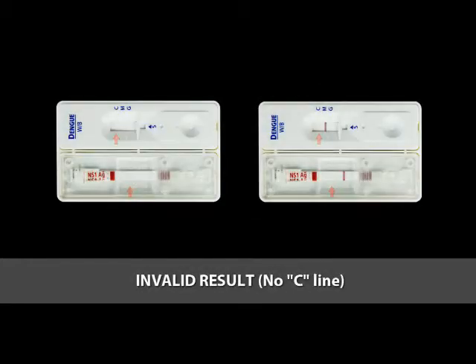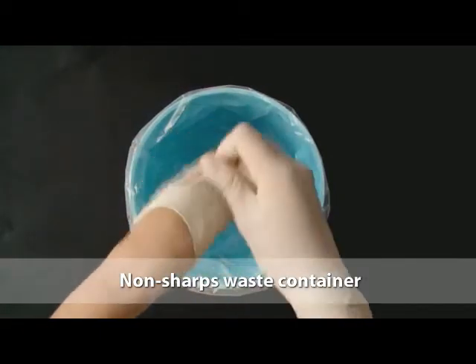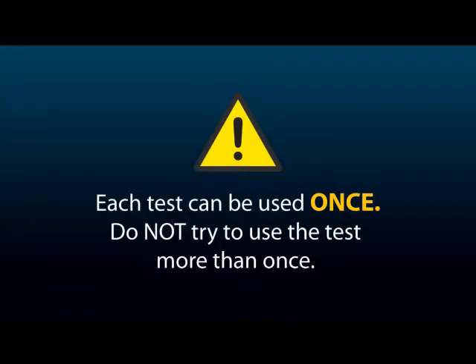The control line fails to appear. Insufficient specimen volume or incorrect procedural techniques are the most likely reasons for control line failure. Repeat the test using a new test device. Dispose of test materials such as test device, gloves, desiccant and packaging in a non-sharps waste container. Each test can be used once. Now remember, do not try to use the test more than once.